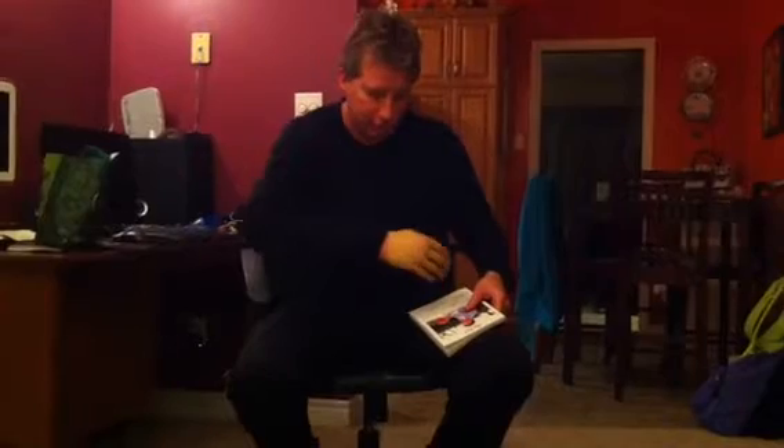Hi, I just wanted to make a quick video for all my friends who gave me a lot of support today for my new Michelangelo. This is the Michelangelo hand, as you can see. The details on it are quite impressive.